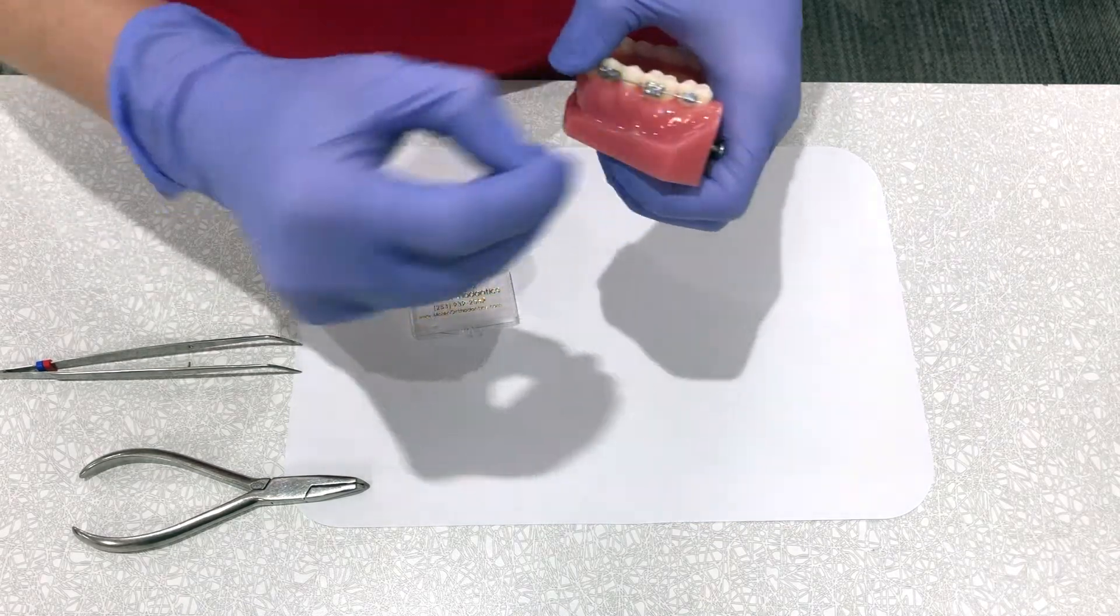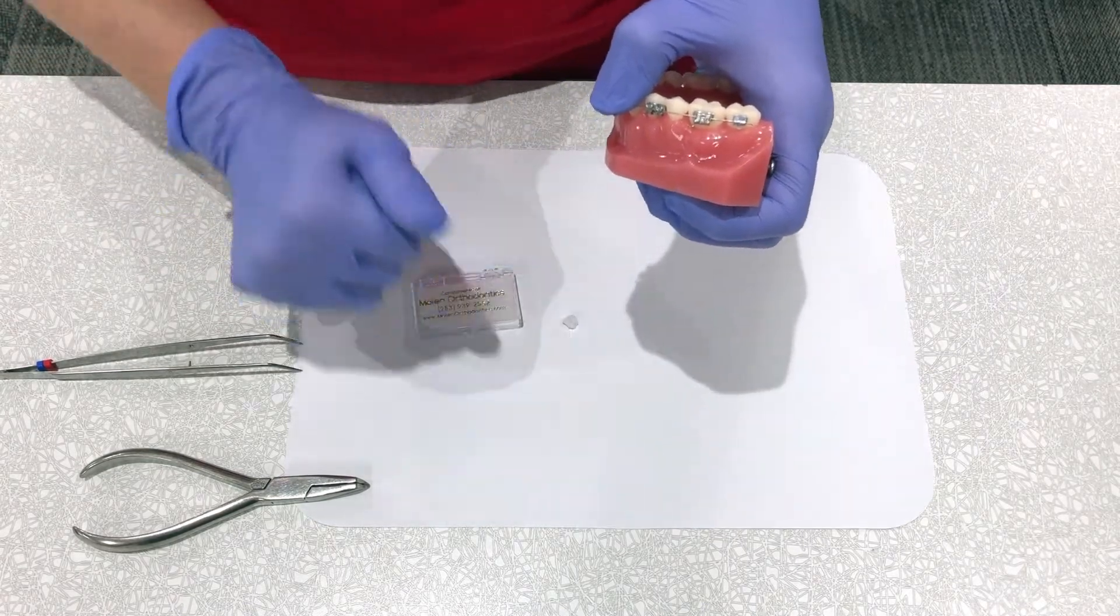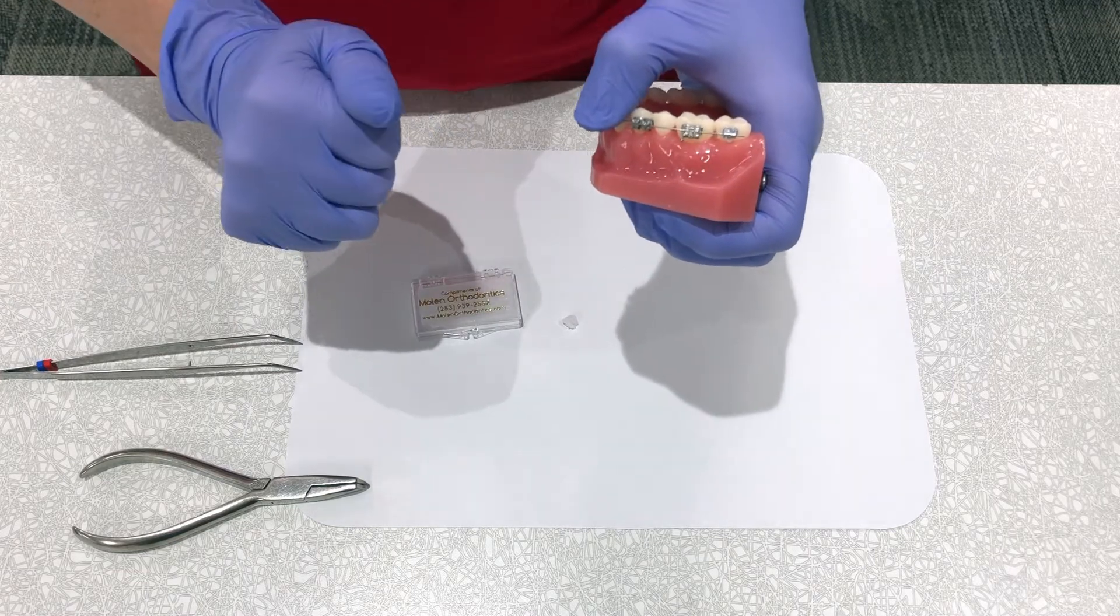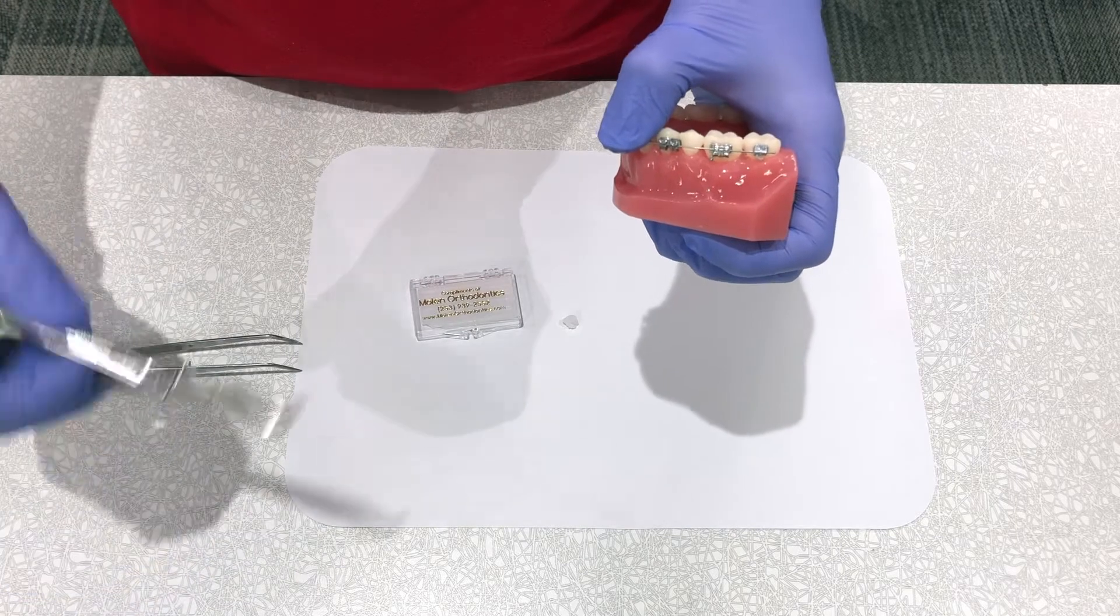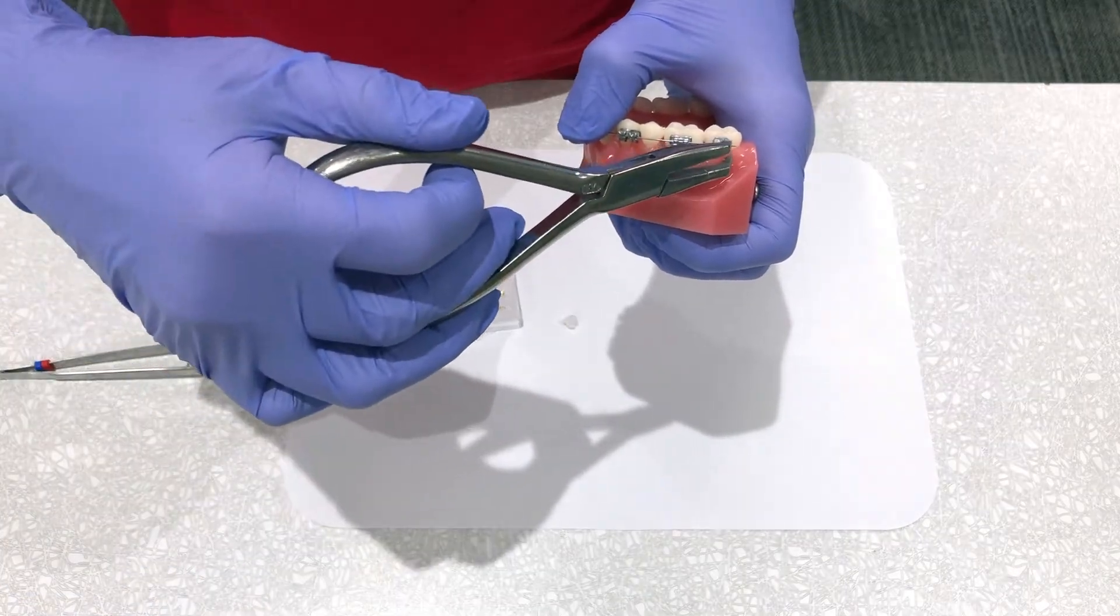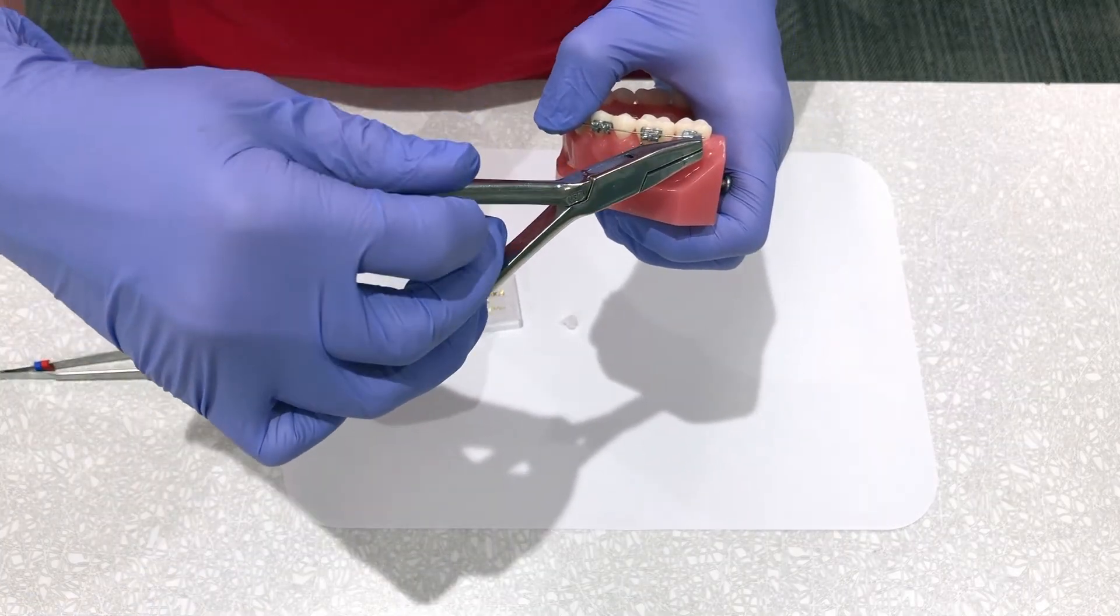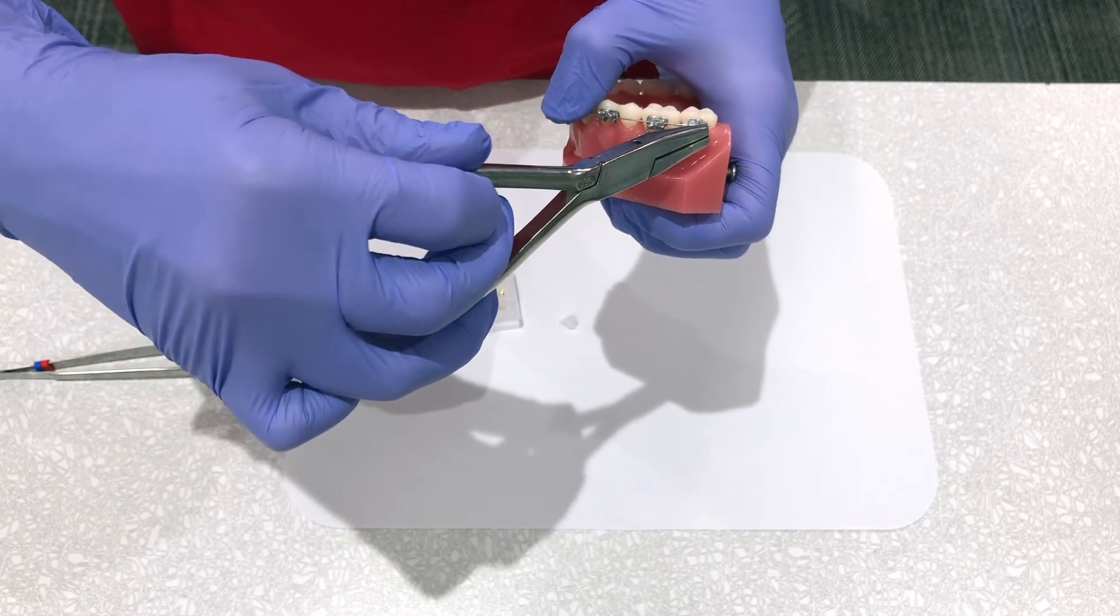If you have wire clippers or even toenail clippers at home, you can get as close to the bracket as possible and clip the end of the wire. This will make you comfortable as well.